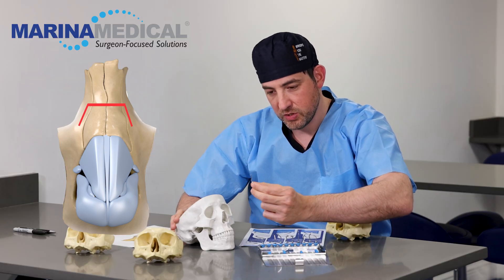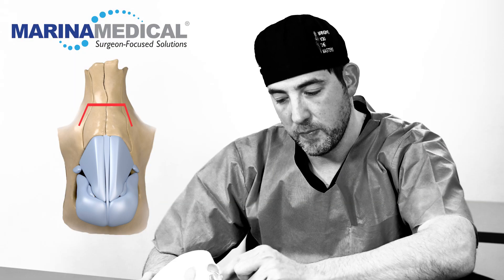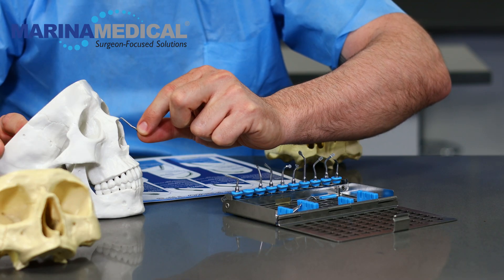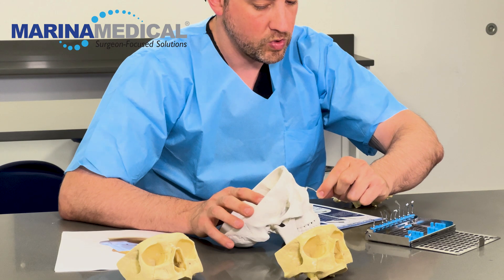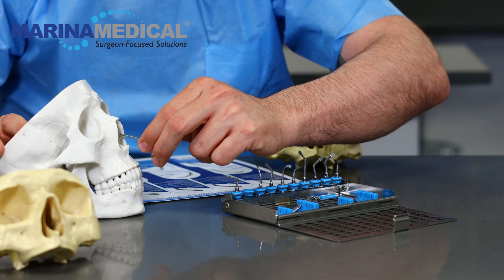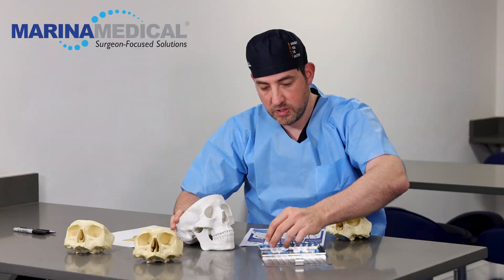I find it very interesting because you can use this tool to create scraping and do some bone removal. If you have a small hump and small bone sculpting, you can scrape it right here. You can also use this inside the nose if you want to harvest some septal bone. It's a very, very useful tip.